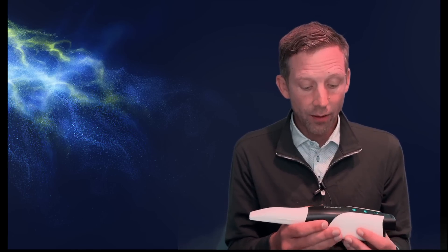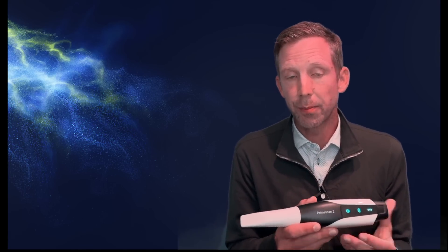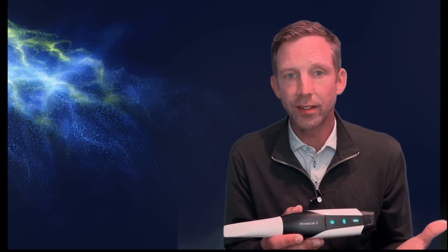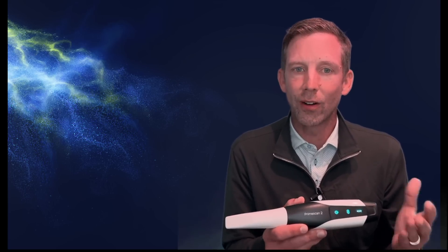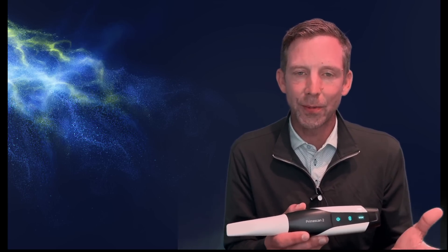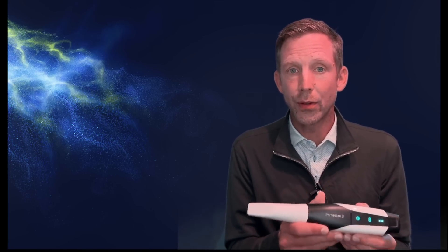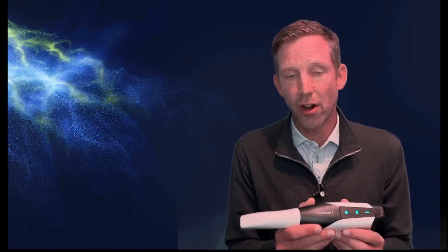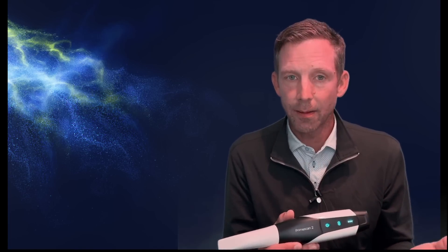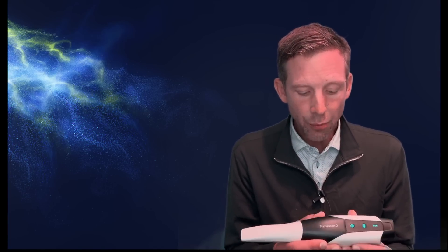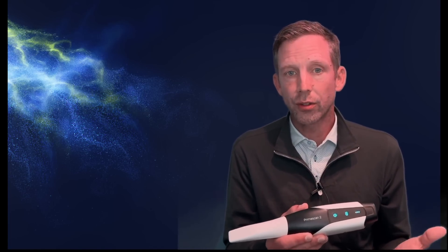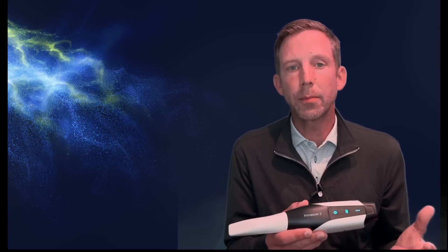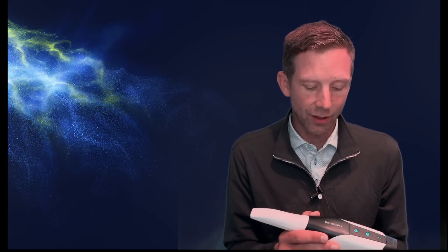I'll show many other videos, but it really opens up the opportunity for you just to move room to room, have DS Core right up on those computers and scan directly to it. So it opens up the versatility of using a scan in your office, whether it's you, whether it's an assistant member or a staff member, and really opens up the door to truly being able to scan all of our patients.